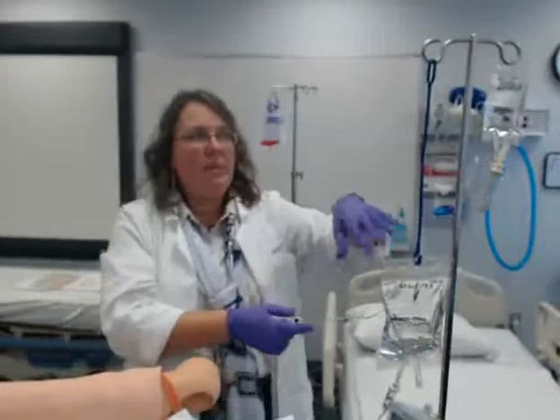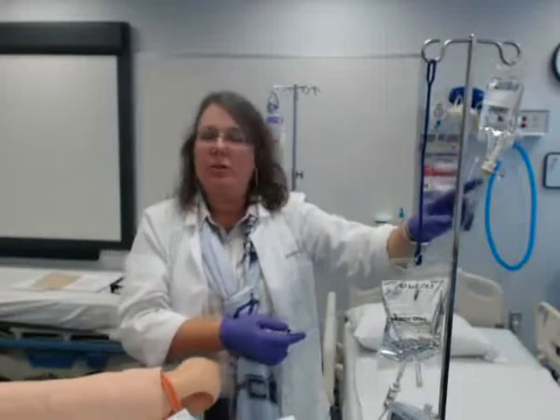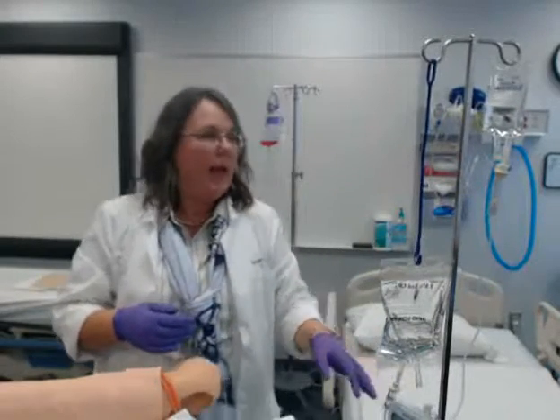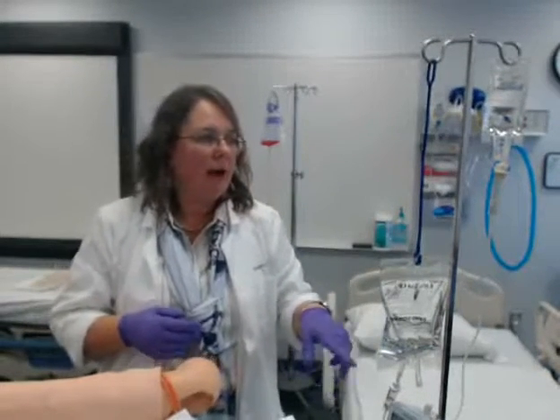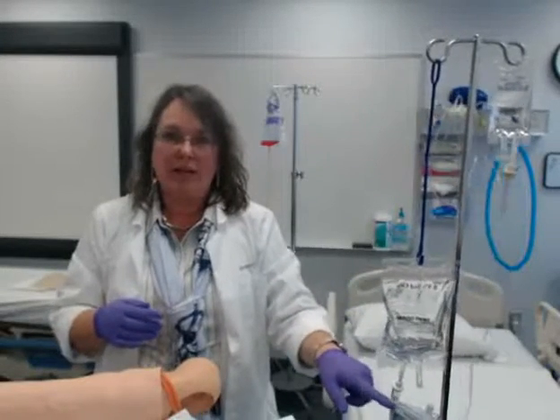Make sure I've set my pump to run the secondary, and I always have to look to make sure it's dripping. It's not dripping yet — that one's still dripping. So I have to make sure that one's going to drip before I leave. The machine will ask you, is your secondary dripping?